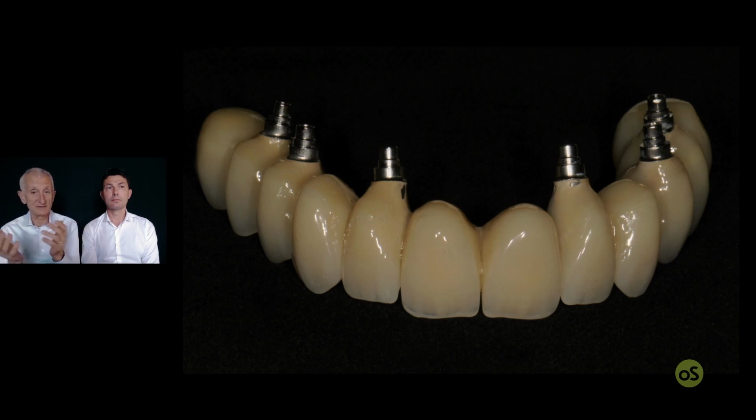So if you put any barrier, like a rubber dam, things like this that someone uses for a reason not so clear to me, but maybe to protect from contamination of the underlying implant or biomaterial being trapped, whatever is your purpose, we don't think it is a good idea, because then your relining material will not read what is the situation under there. Okay?